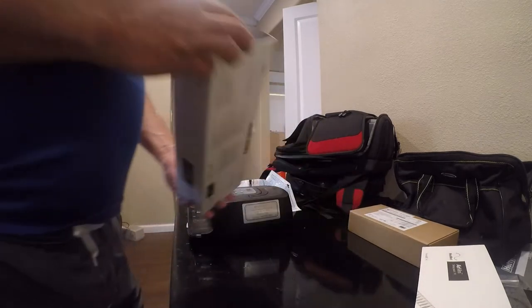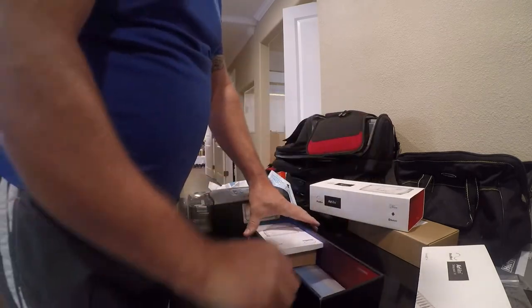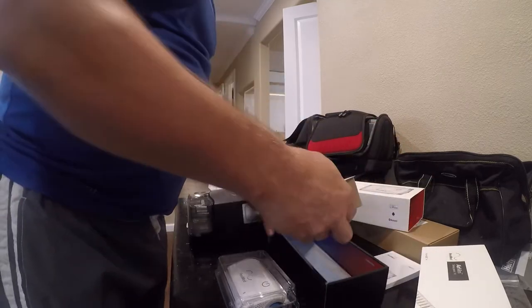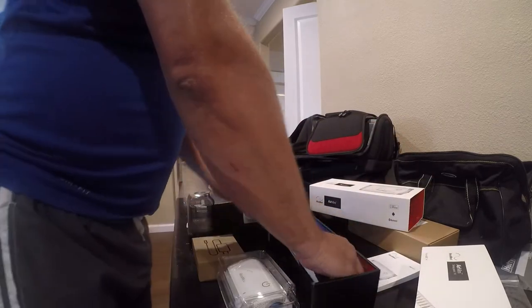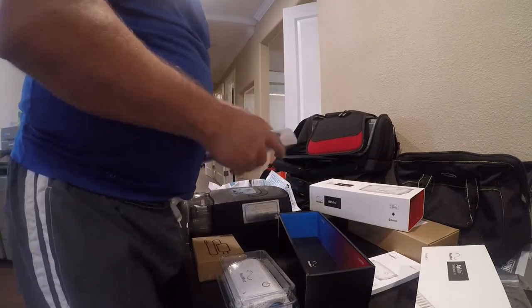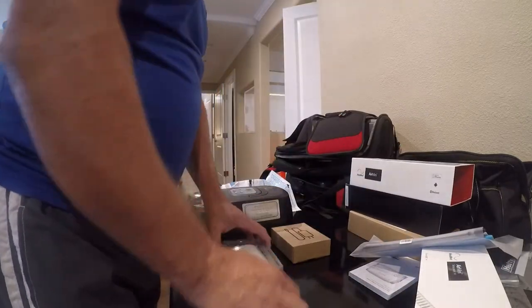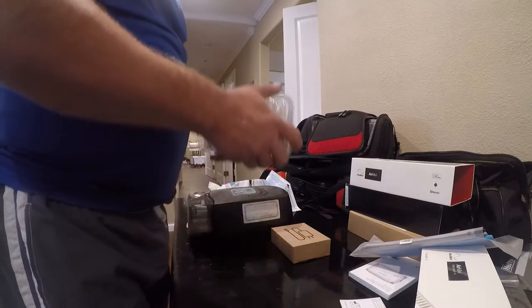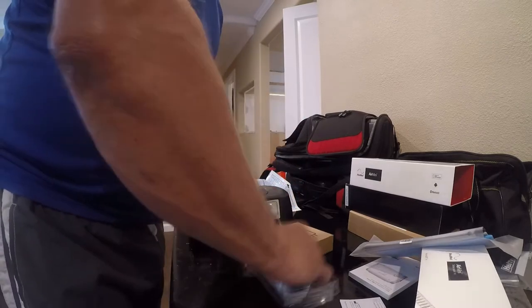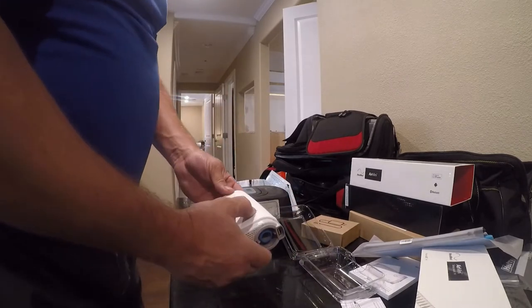So I decided to splurge and buy myself a ResMed AirMini. And this is it. So it comes with a big book and what I guess is a case or a bag. That's my whole travel CPAP machine. So we went from this to this, which is really cool.